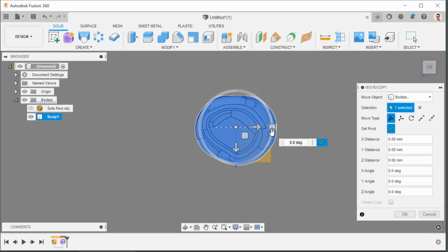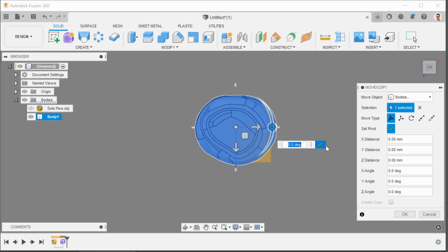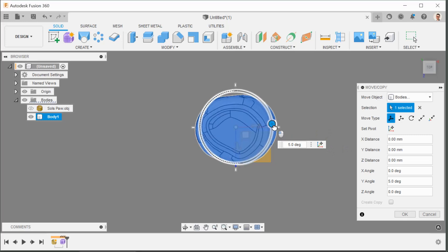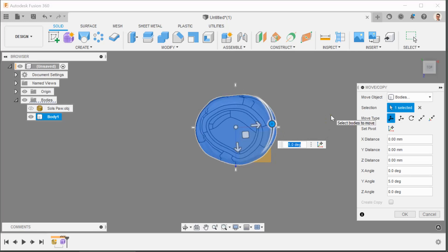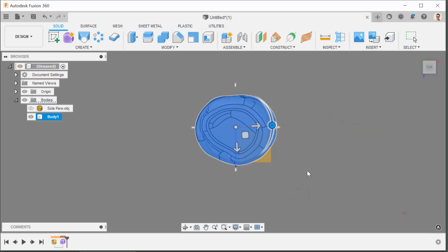So looking straight down from the top again, and I'm just going to turn it slightly. Take it back to zero, I forgot to check the green tip. I'm going by eyesight here, but that looks... I think again about three degrees is probably right. Seems like I'm being incredibly fussy but these things are important.